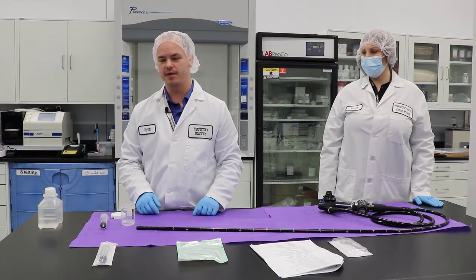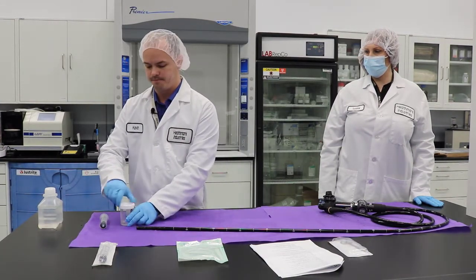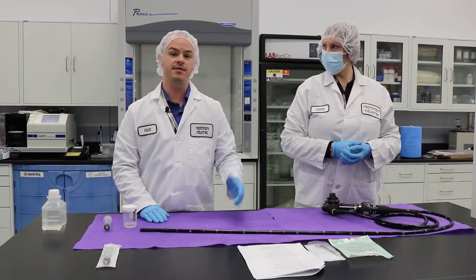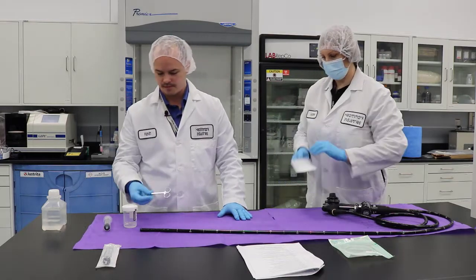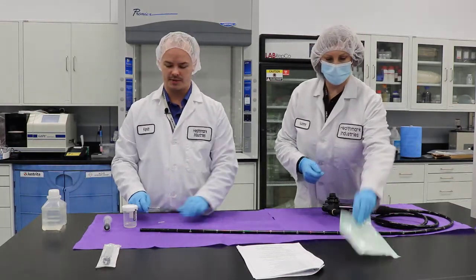We collected our sample and we're going to cap it and get ready for the next step. We're going to get the next supplies we need — we're going to get our scissors ready and the facilitator can open them up for us. We're also going to need our brush to be ready.